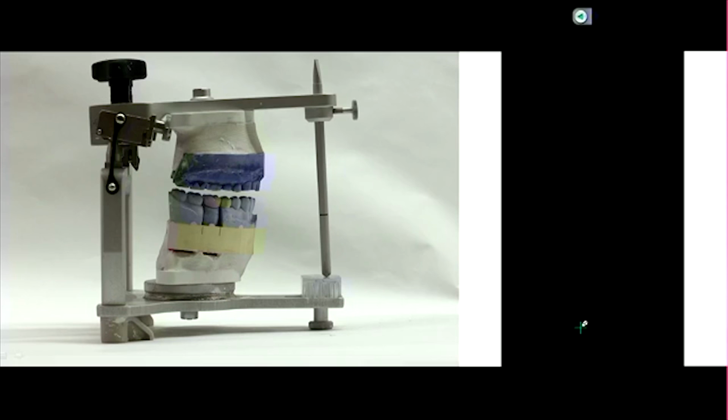So are you okay with that potential adjustment, with the benefit that you can save time and impression material, and the ease of using a triple tray? If you can live with a few adjustments and then it'll be correct, then in those situations you're more likely to use a triple tray.